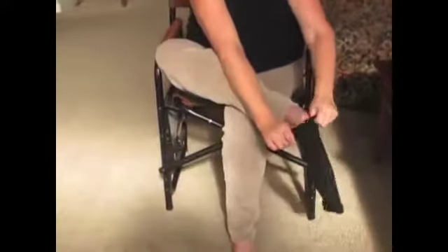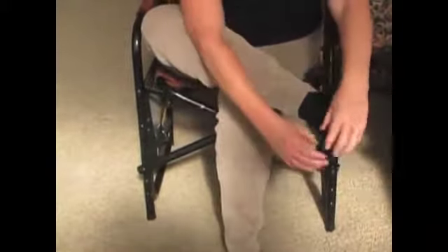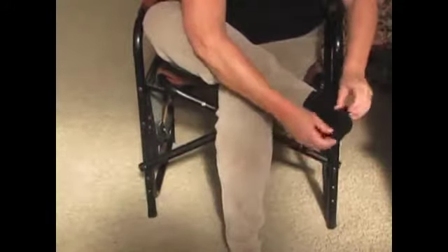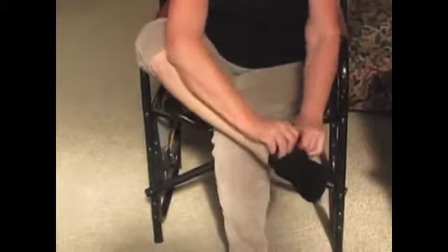There's my toe spot. I'm going to slip my toes in here, pull it taut, and then pull this up and through. There's my toe, and it's going to fit your leg just like a glove.